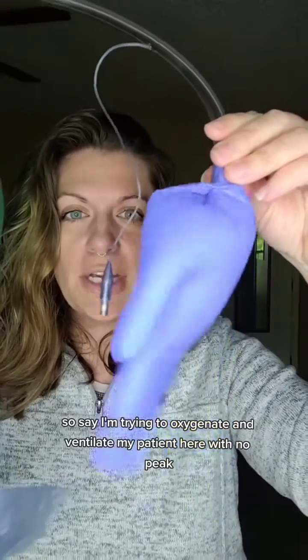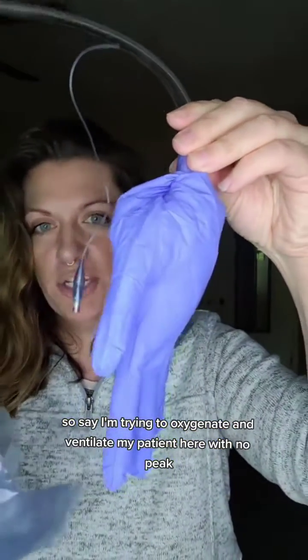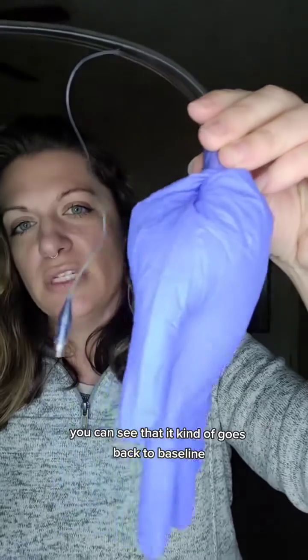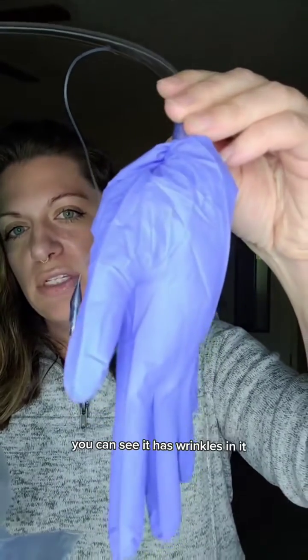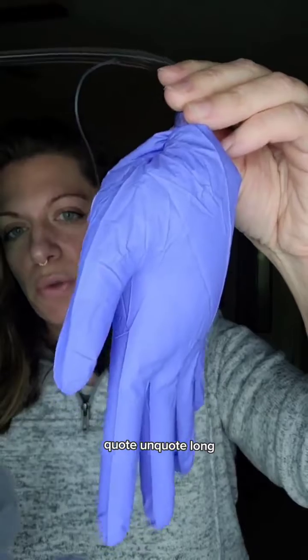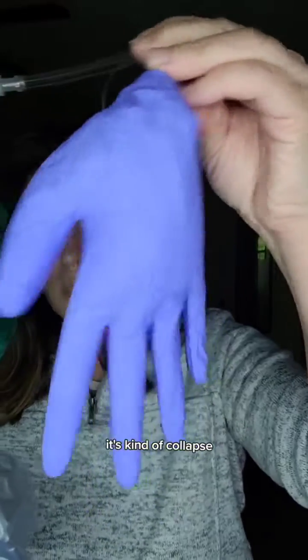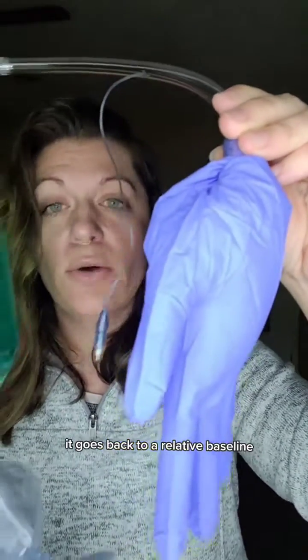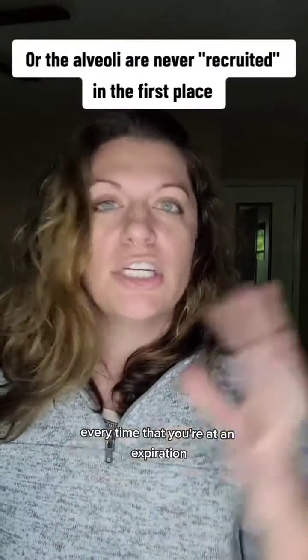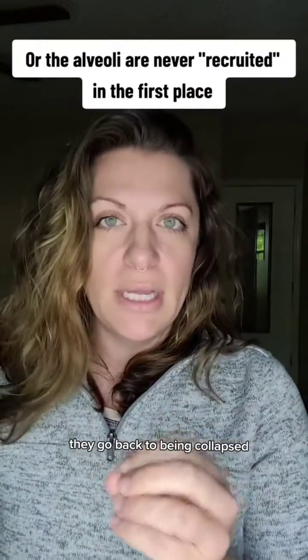Say I'm trying to oxygenate and ventilate my patient here with no PEEP. You can see that it kind of goes back to baseline — you can see it has wrinkles in it in this little lung. It's kind of collapsed. It goes back to a relative baseline with no PEEP, so those alveoli every time you're at expiration go back to being collapsed, which is not what we want.